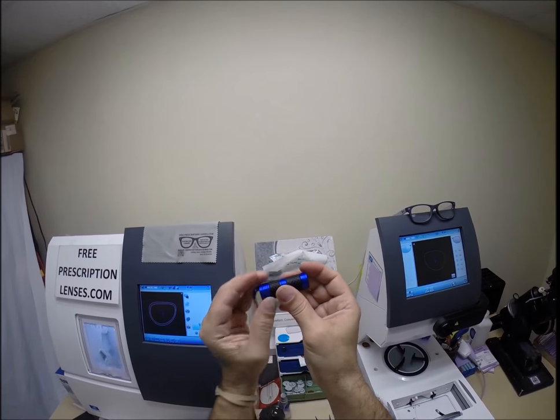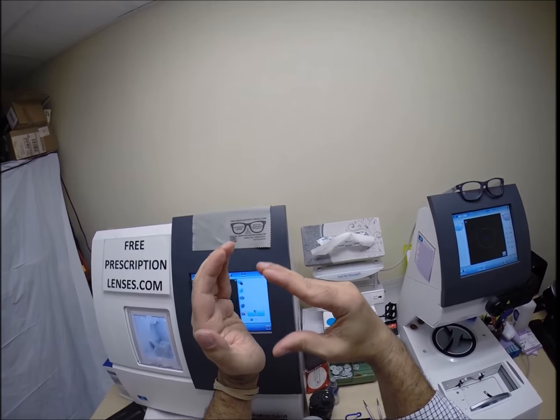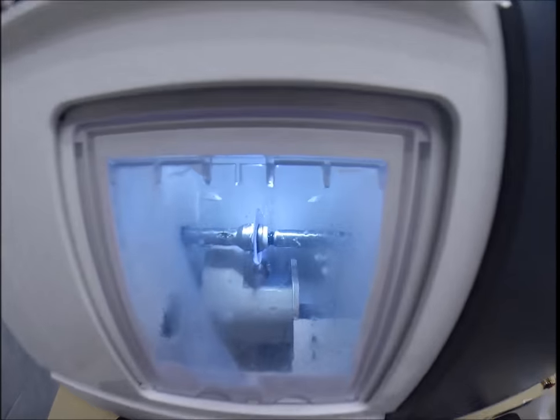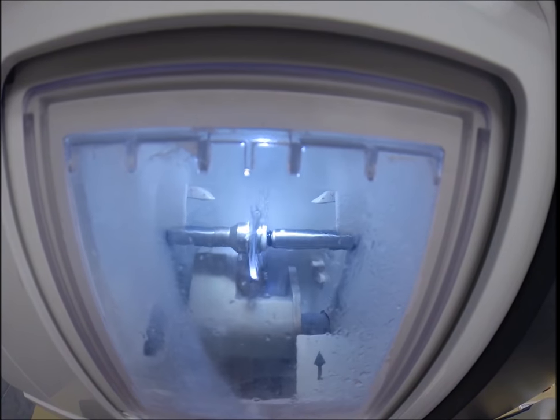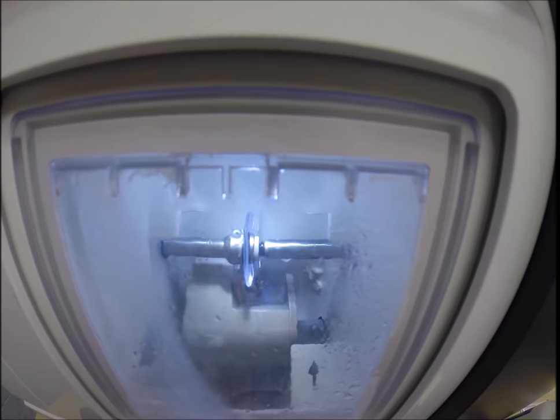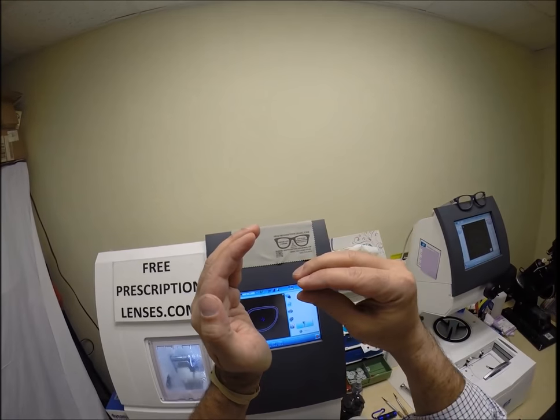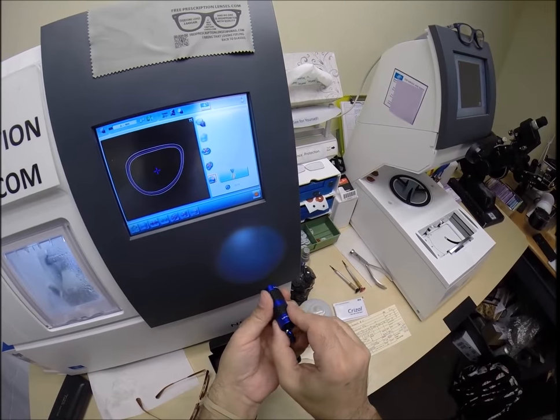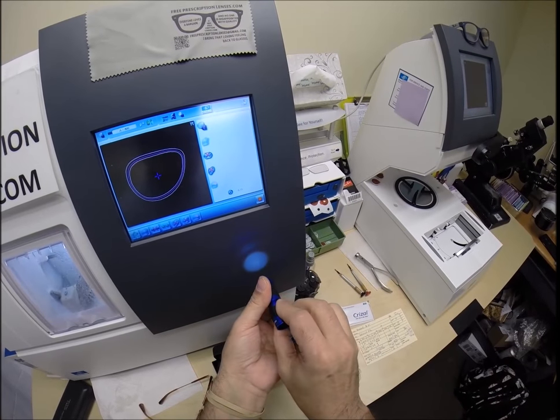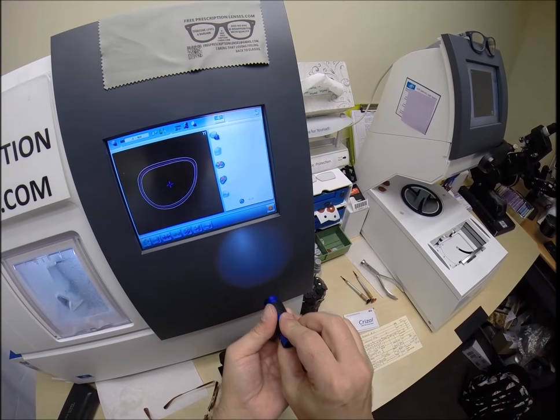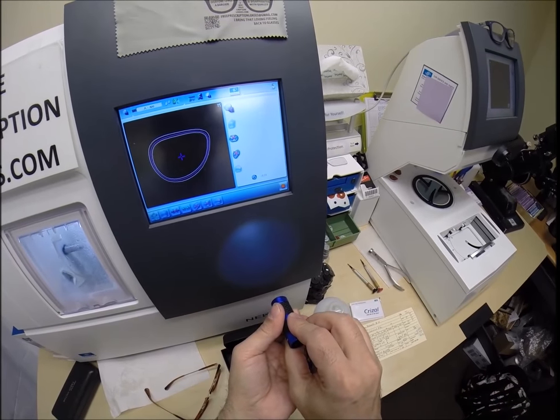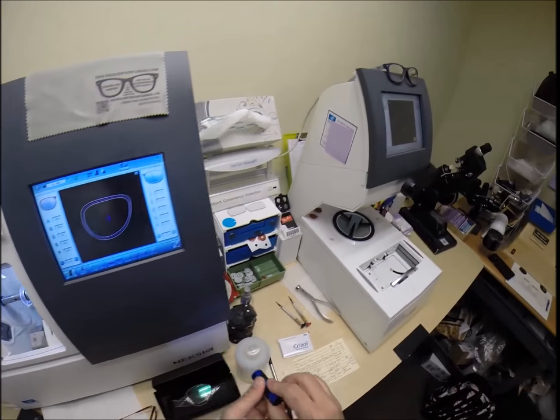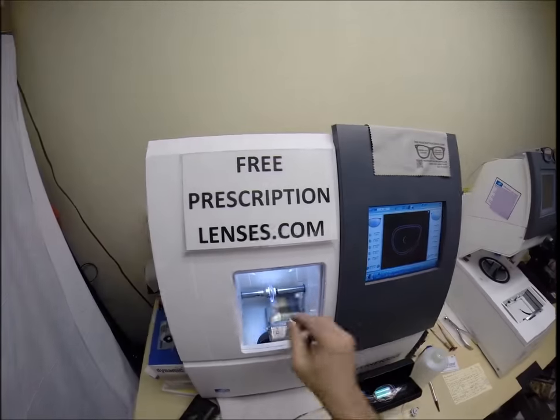You would tremendously benefit from the anti-glare coating because driving at night, you have two curves on your eyes. One curve this way, which isn't that much, and a very steep one. Because of that, when light comes in, it goes through the iris, but then it opens back up again and scatters all along the back of your retina. That's what gives you a terrible halo effect. Instead, it needs to be one point focus. So that brings that in. It helps focus everything.